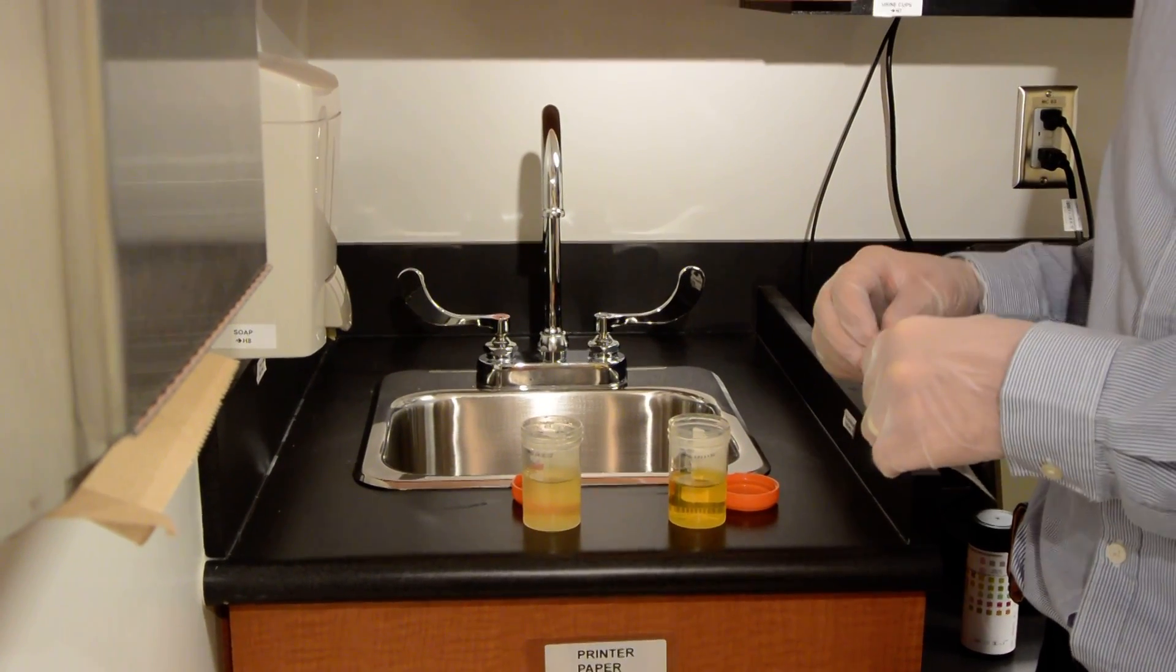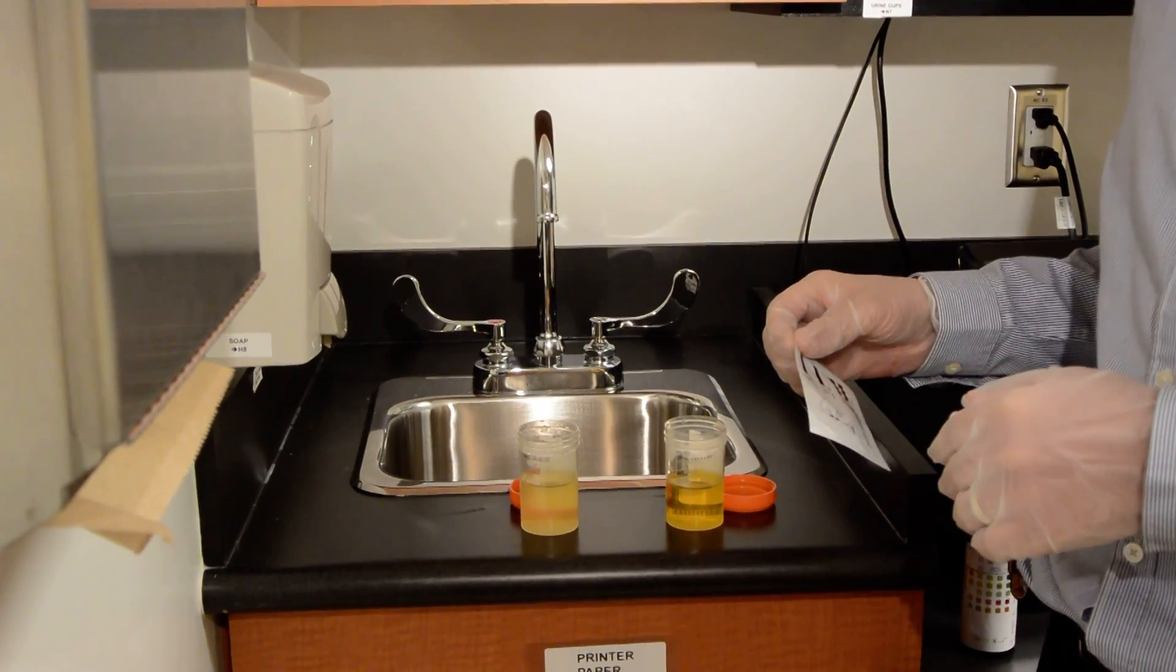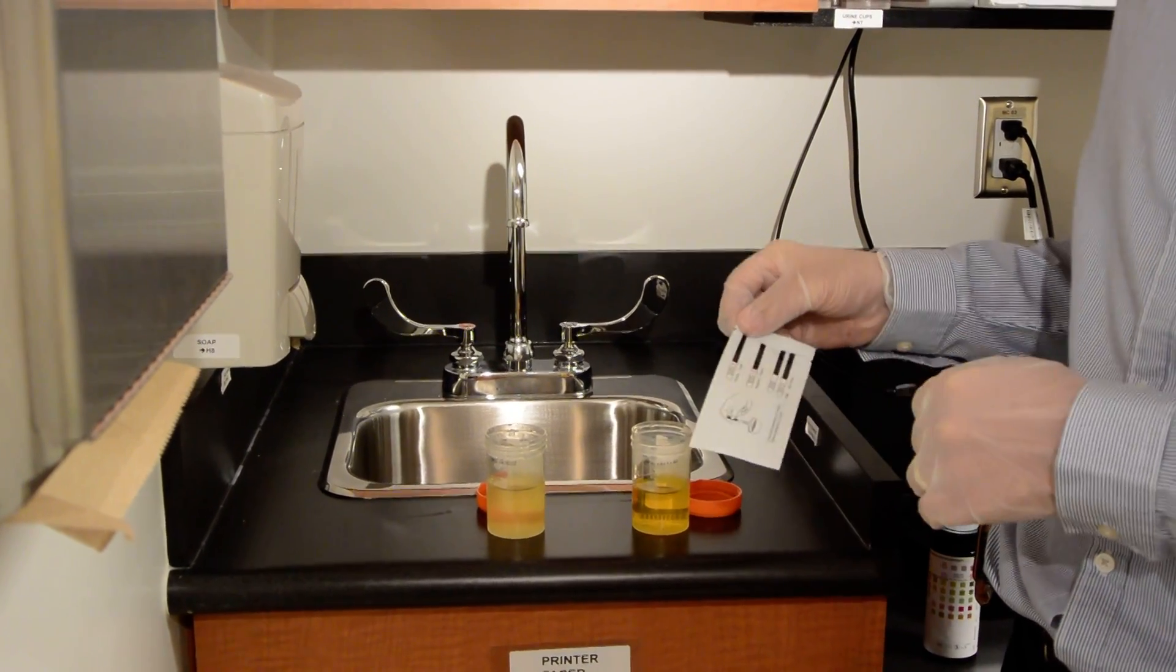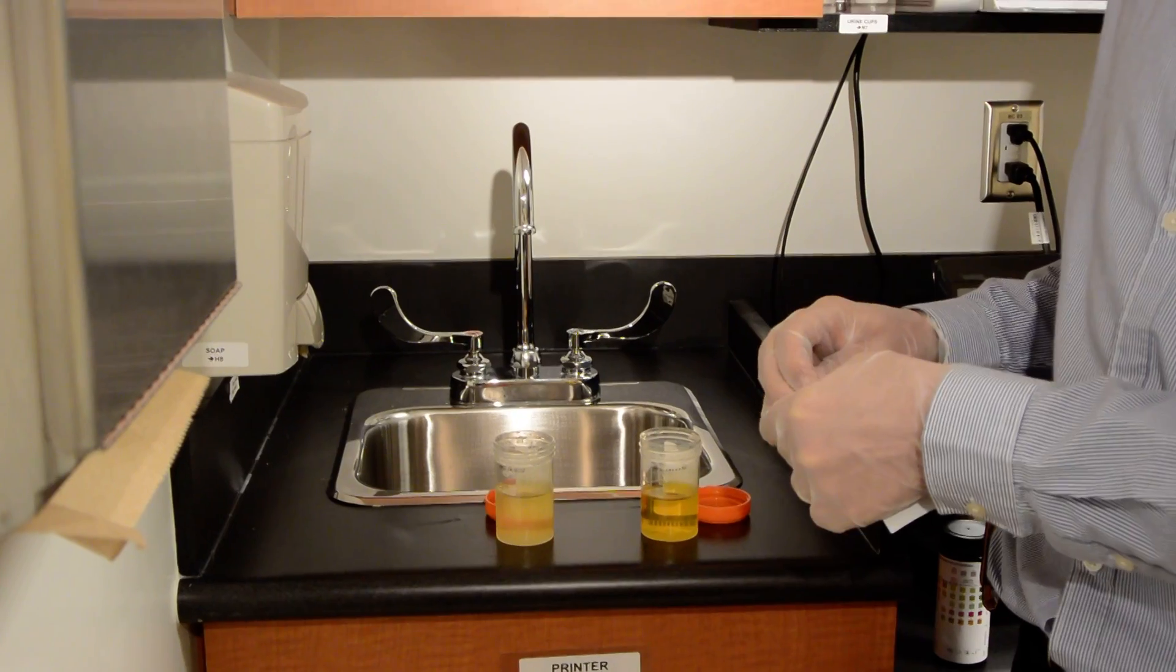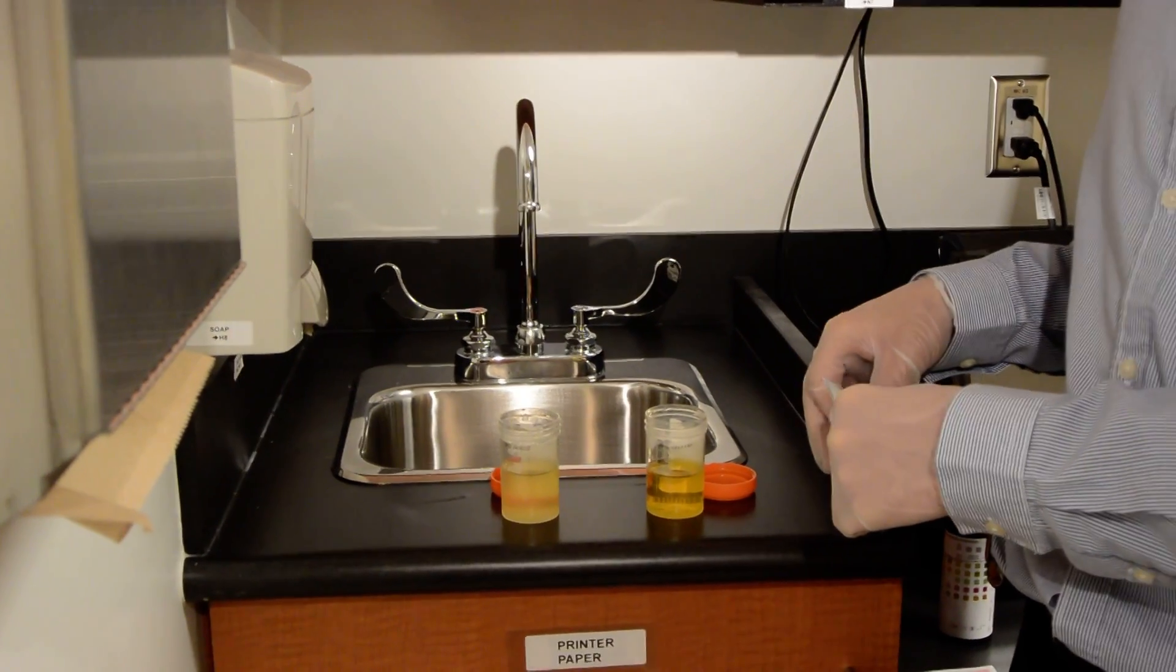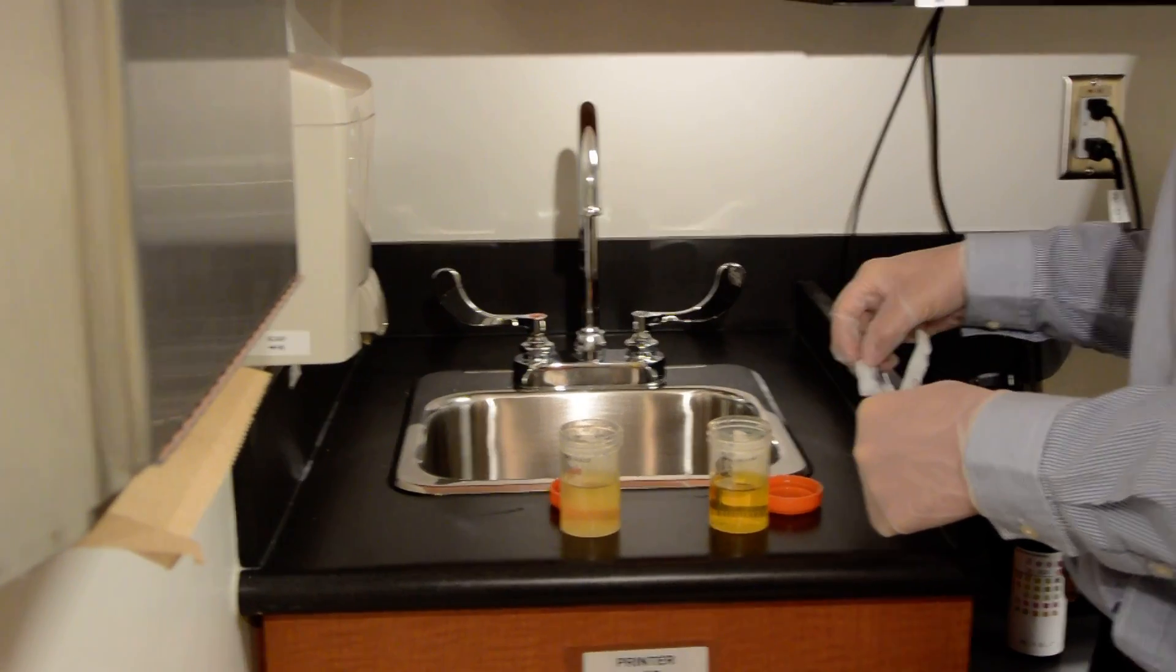So in this presentation we'll demonstrate how to do appropriately a urine pregnancy test. We have the kit here which we will open and we've got two samples here, one which will be positive and the other one that will be negative.